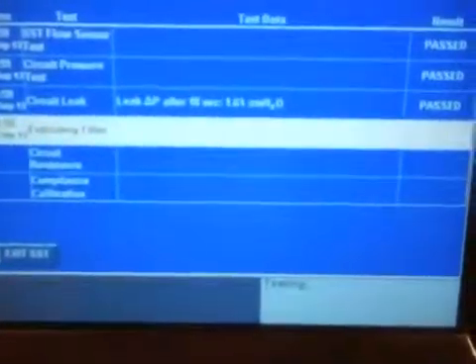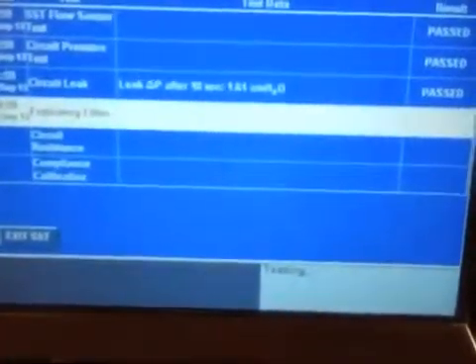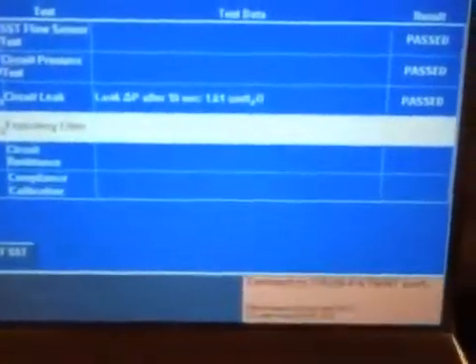It's telling me now to disconnect from patient port. That might seem confusing, but look at what it's asking you to do. We're actually testing the expiratory filter, so from patient port is the expiratory. So I'll actually just pop this off. Hit Accept. Connect to from patient port. So again, might be a little bit confusing, but put that back onto the expiratory side. Hit Accept.